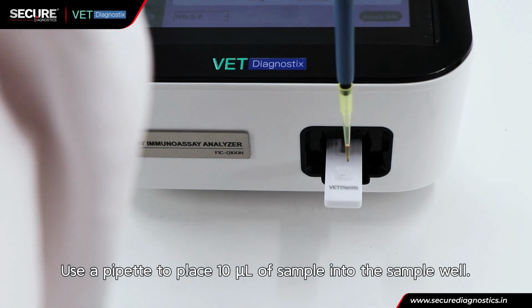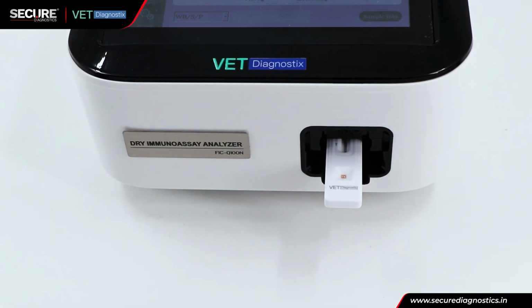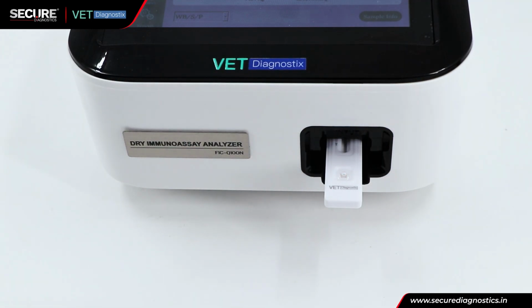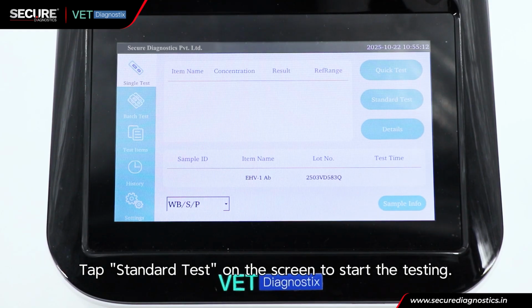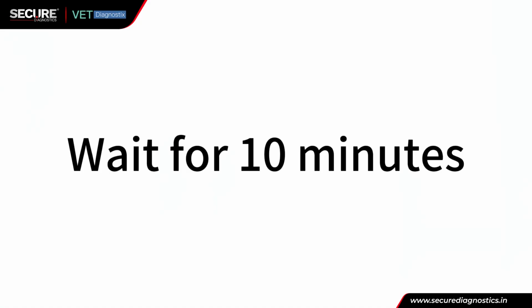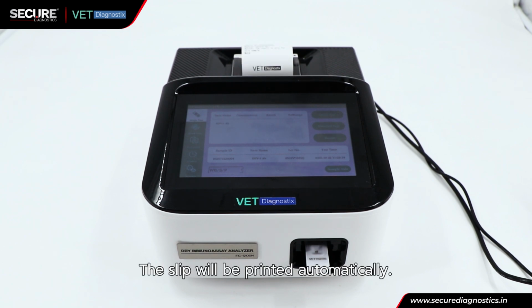Use a pipette to place 10 microliter of sample into the sample well. Add 90 microliter of the assay buffer into the sample well. Push the test card to the farthest end of the slot. Tap Standard Test on the screen to start the testing. The slip will be printed automatically.